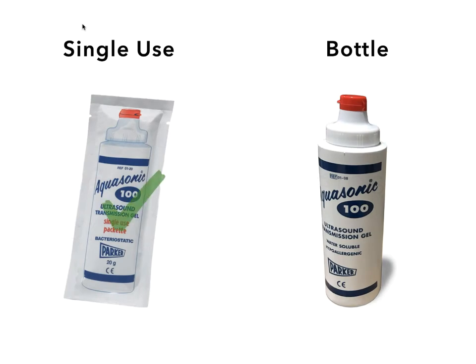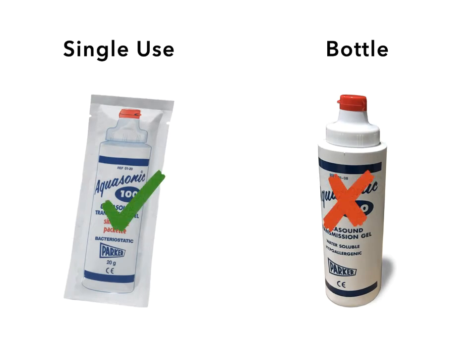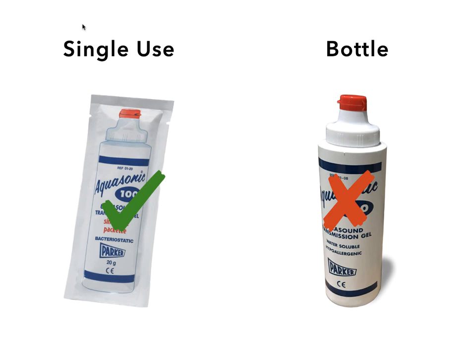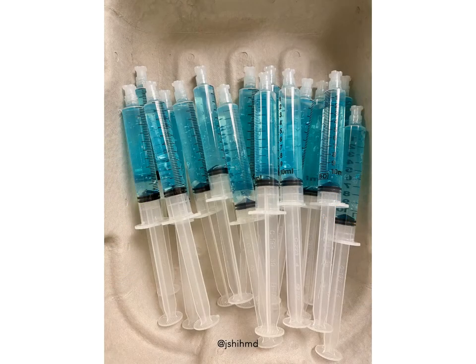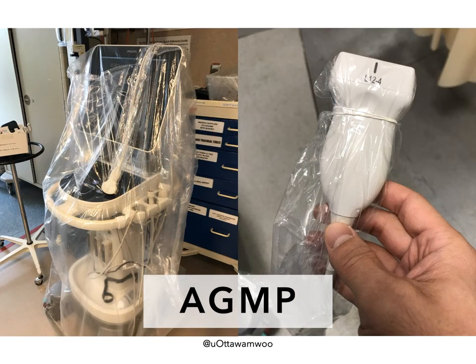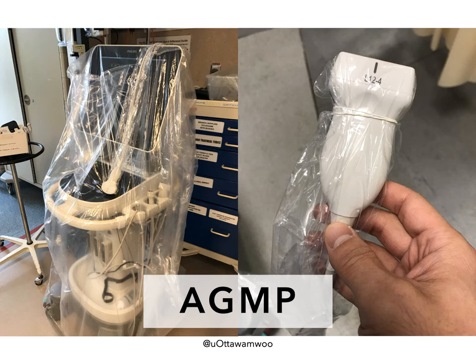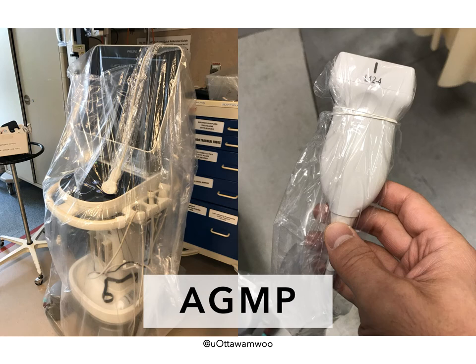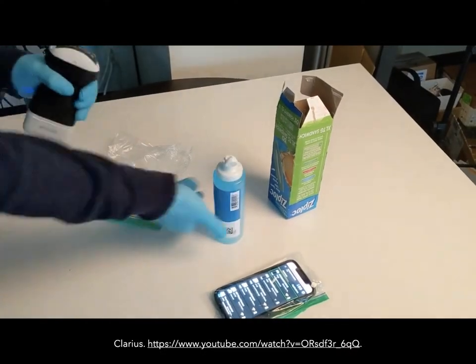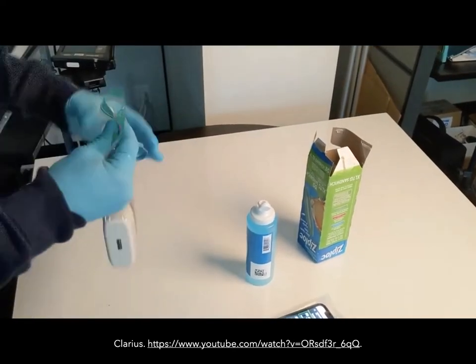You should utilize single-use gel packets instead of bottles — a bottle of gel is too high risk from an infection transmission standpoint. If you don't have single-use gel packets, here's a hack where you can make your own single-use gel dispensers with 10cc syringes. If you're planning on scanning in a patient room where aerosol-generating medical procedures are taking place, consider covering your machine and your probes and cords in plastic. A handheld can easily be placed in a plastic sandwich bag, as can your smartphone.